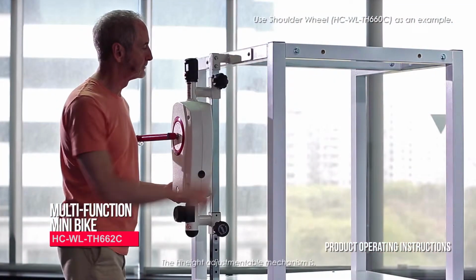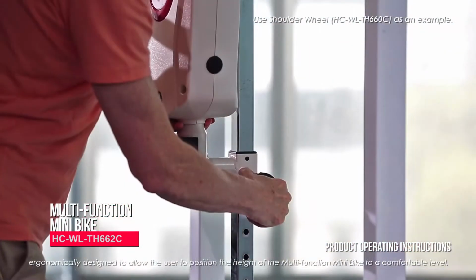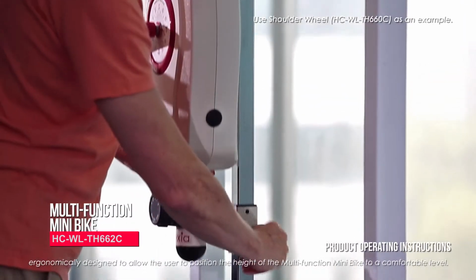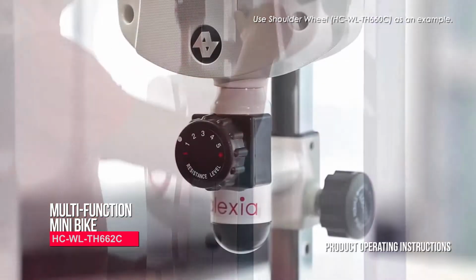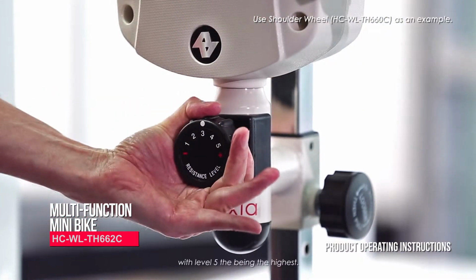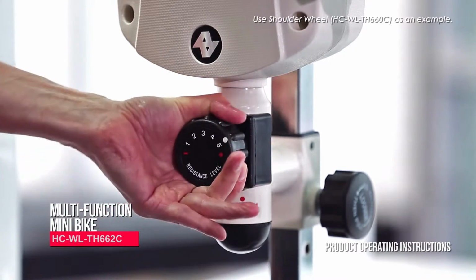The height adjustment mechanism is ergonomically designed to allow the user to position the height of the multifunction mini bike to a comfortable level. The resistance range is from level 1 to level 5, with level 5 being the highest.